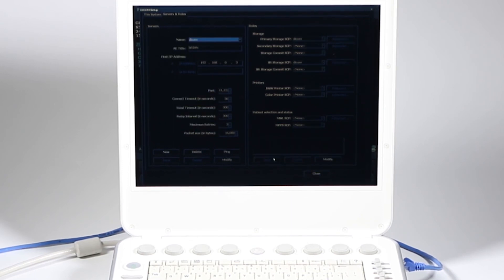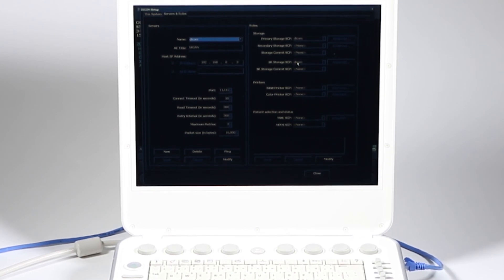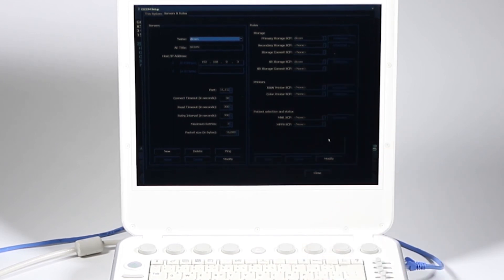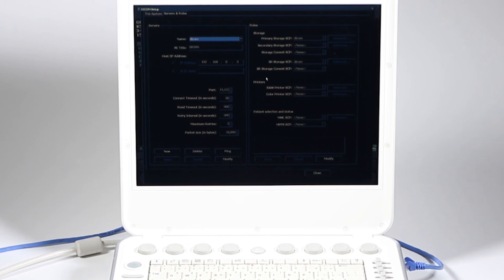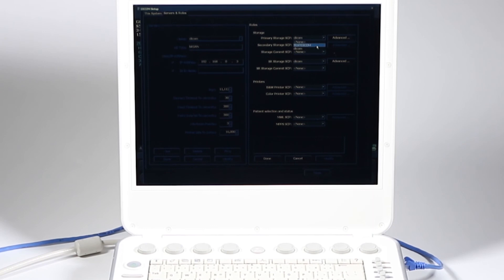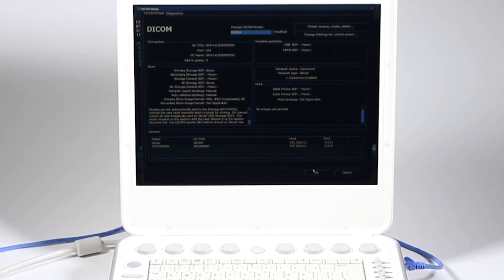I know my DICOM works. I was able to ping and I'm ready to go. I checked over here my roles for storage. This is what's going to happen. You may have two locations to send to different places, and this is when you would want to have a different radiologist. This is where you're going to go ahead and modify and choose your other PAC server to send that to. But I'm not doing that right now. I'm going to go ahead and close.